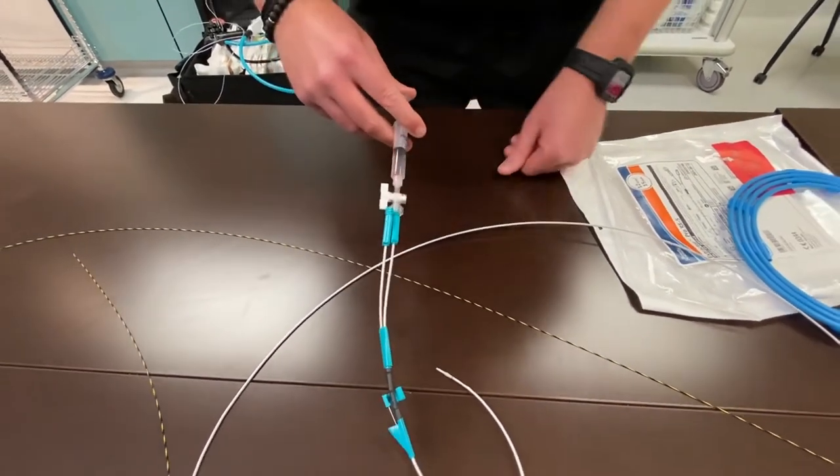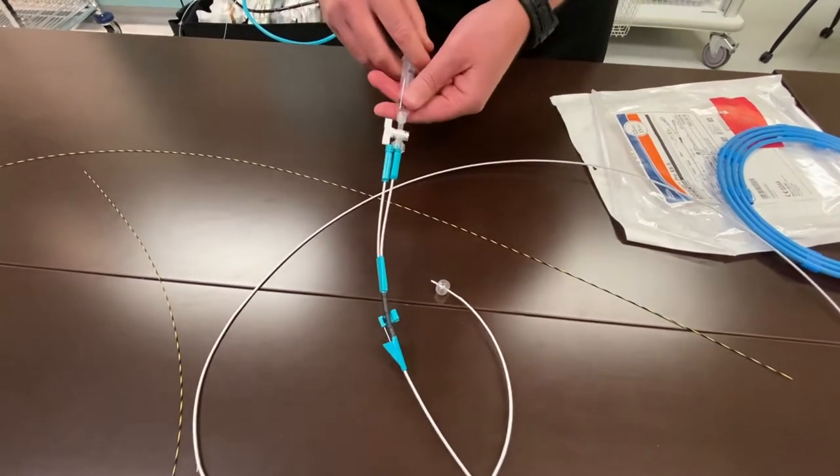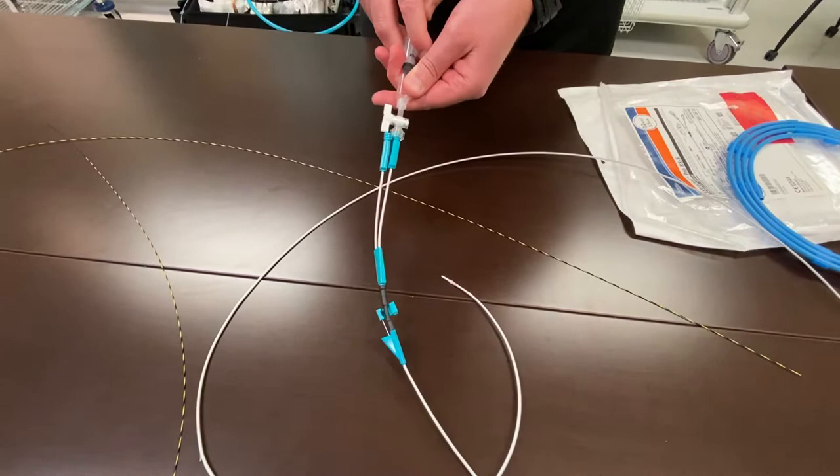You'll connect it. You'll inflate all the way to ensure the balloon inflates, and then we know that the balloon wasn't damaged out of the package.